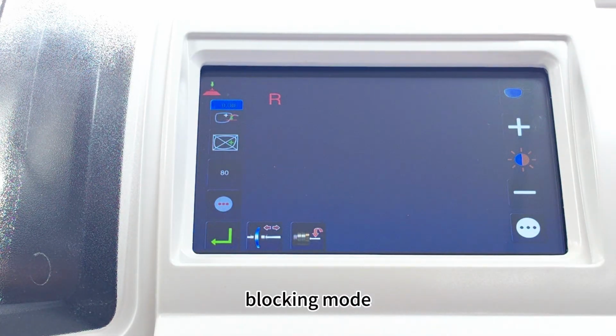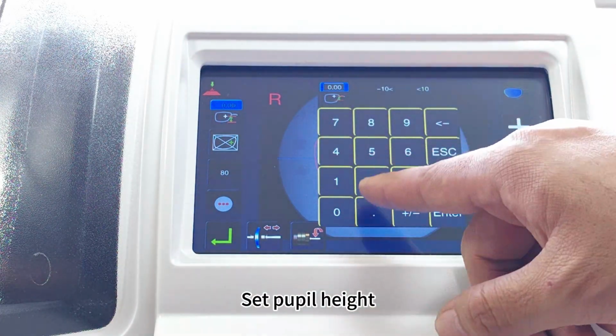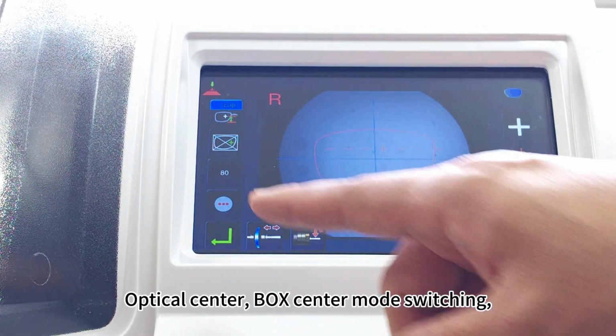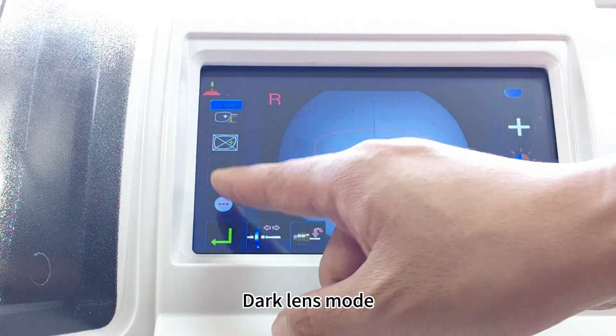Blocking mode. Set pupil height. Optical center, box center mode switching. Lens diameter setting. Dark lens mode.